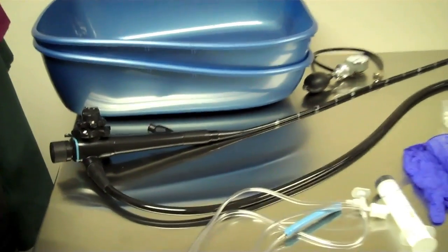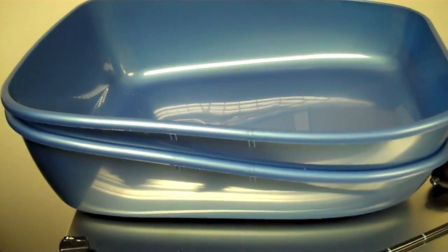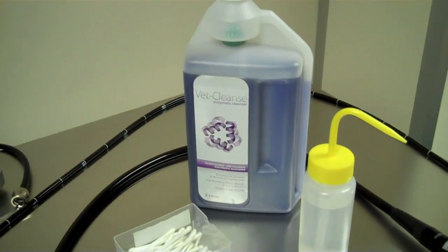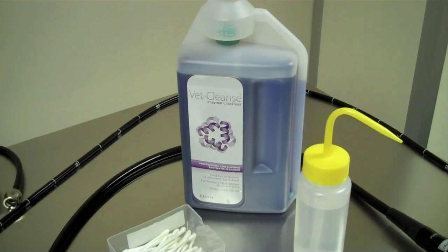The items you'll need for routine cleaning: you will need two large basins, some non-abrasive enzyme solution or disinfectant.